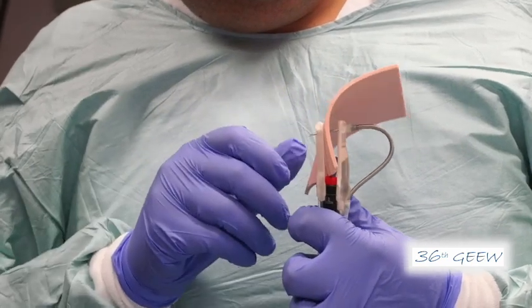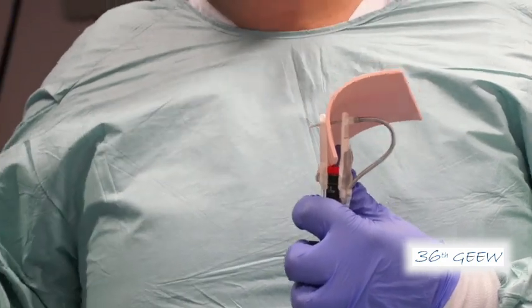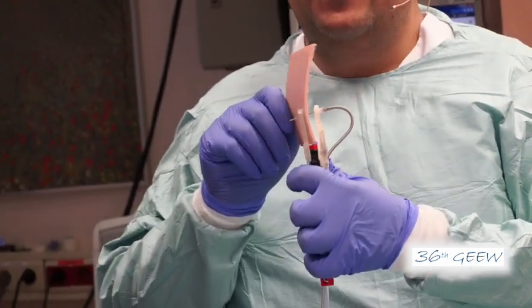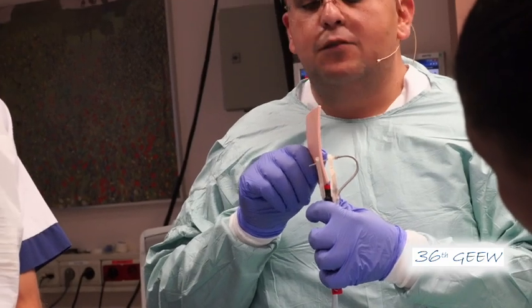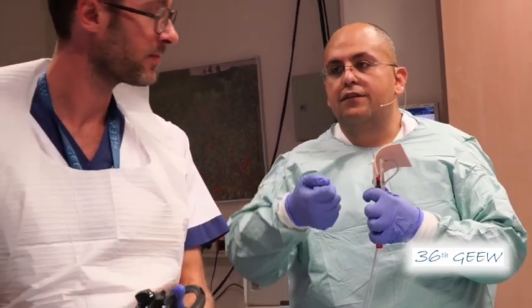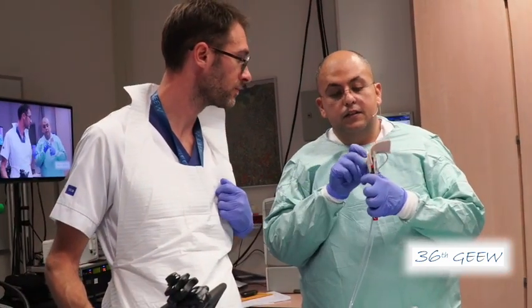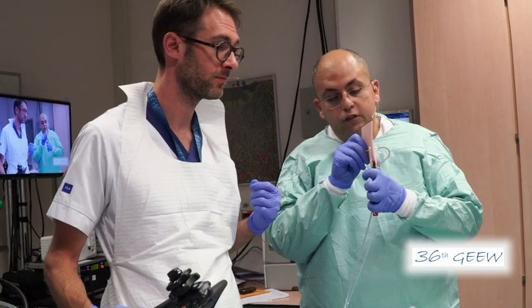You cheated a bit with your finger — how is that in the body? This is in the body. The difference between here and the body is we pull back on the tissue inside — we have this pressure of pulling back of the tissue inside. This is why I just support it with my finger.